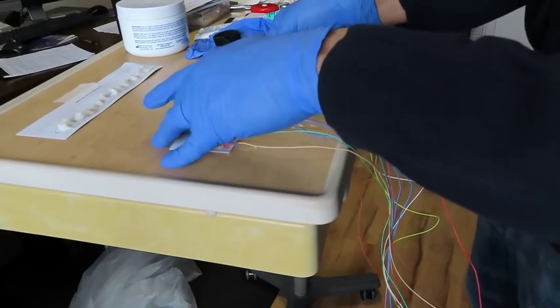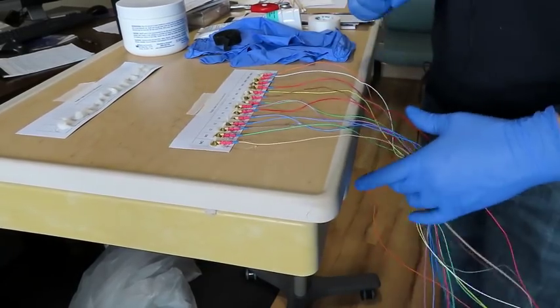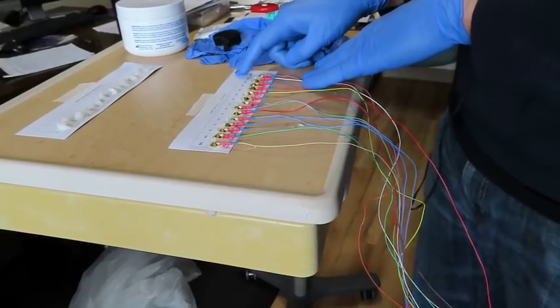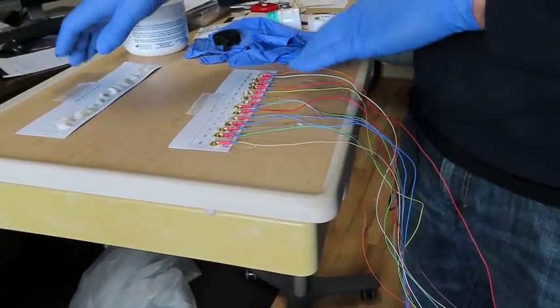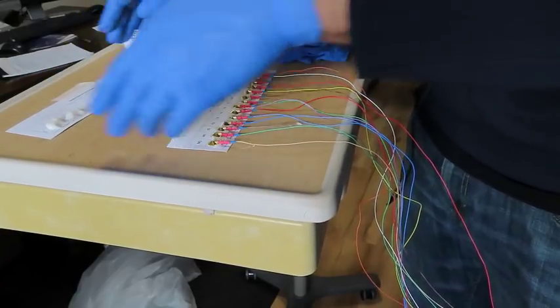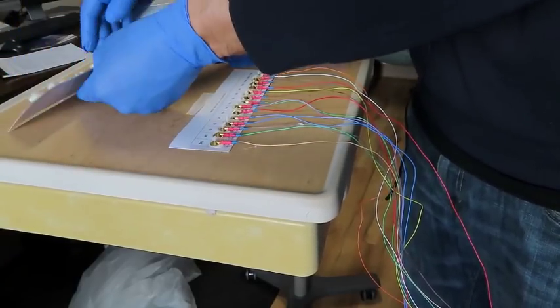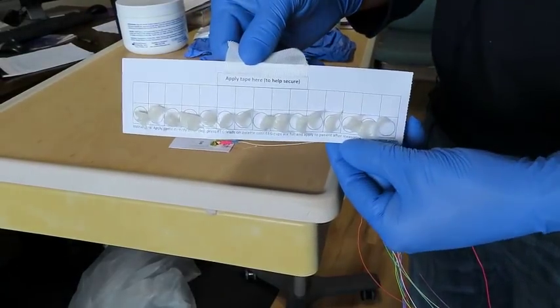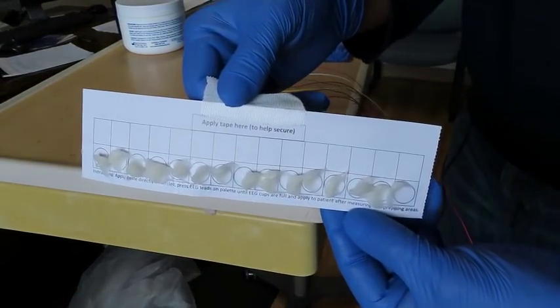This is it for my current one that I'm using here. It doesn't have the E3 or the EMG3, but this will be the same system. If you were using this one here, and you're not comfortable with what's printed on there, you would just use this one here and pencil or pen in your own.